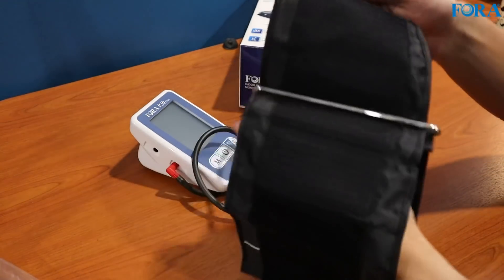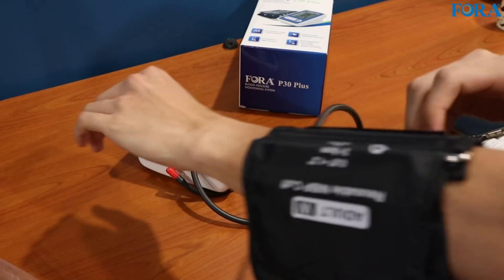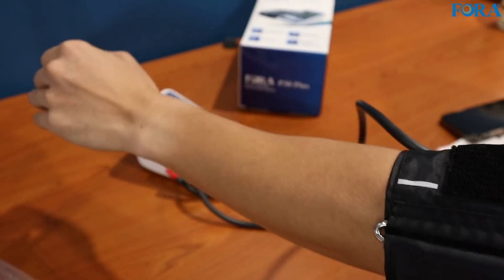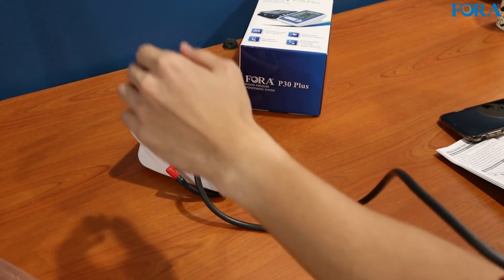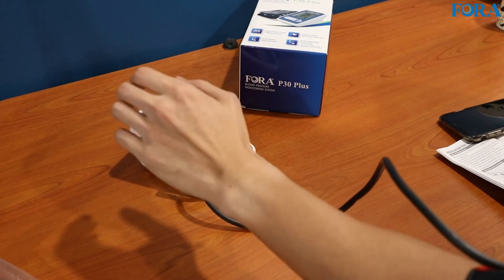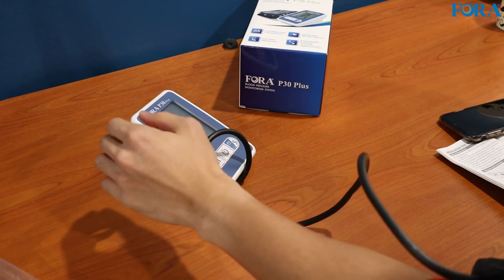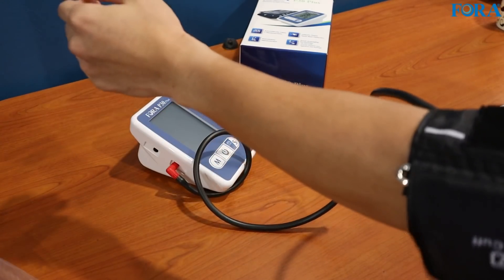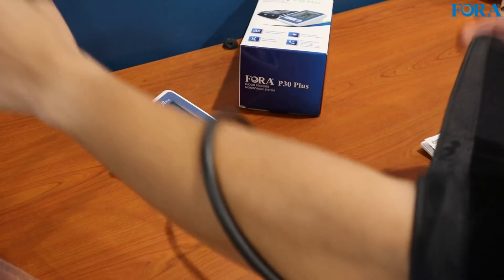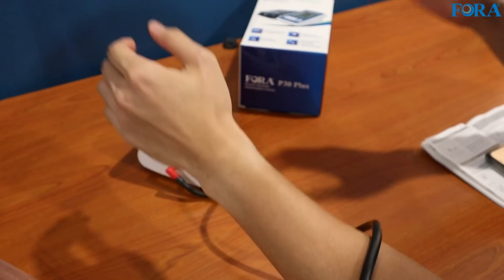That's the only way to show the device in action. So let me put this on my left arm. There are also a couple of guidelines included for measuring your blood pressure, such as: do it only 30 minutes after you shower or after you exercise, and don't measure when you're feeling anxious or tense — which is usually how I feel when I'm recording videos. Also, you should place your elbow on a flat surface. You just have to read the manual to make sure you are allowing the device to record as accurately as possible.